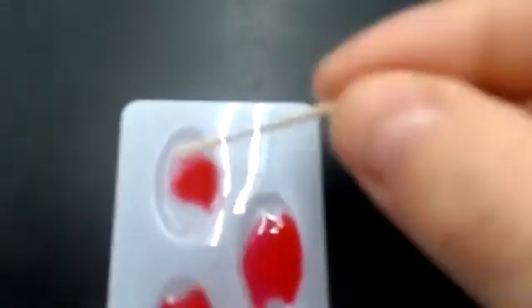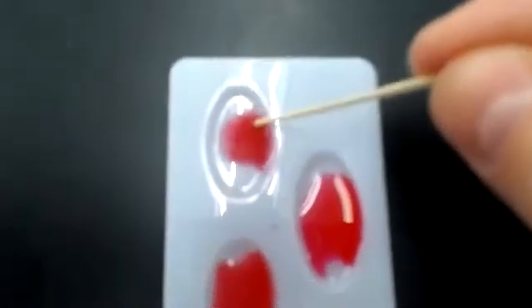This first well up here, you may be able to see that there are some dots. Glare is not helping me out that much. There are some little dots that are forming in there. So that would tell us that the A well is agglutinating.